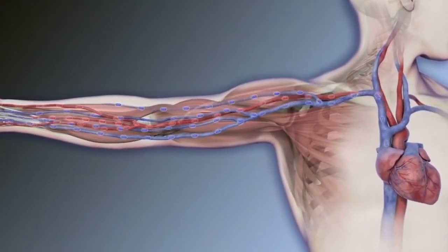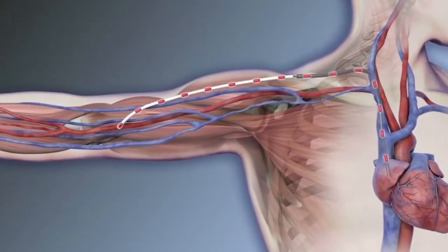HeroGraft provides continuous blood flow directly from an artery into the central venous system.